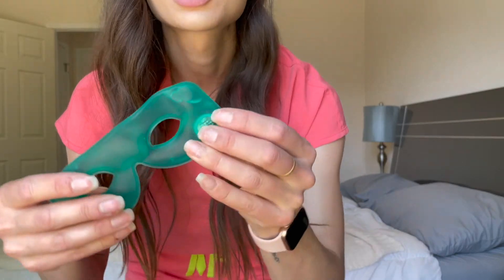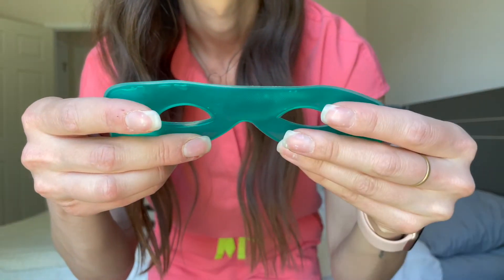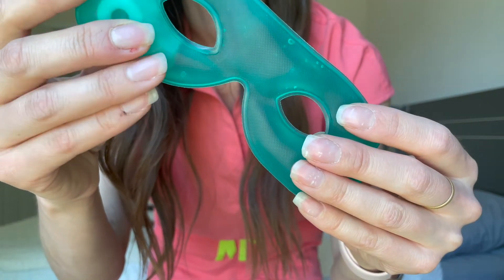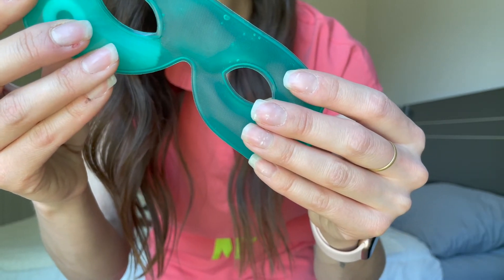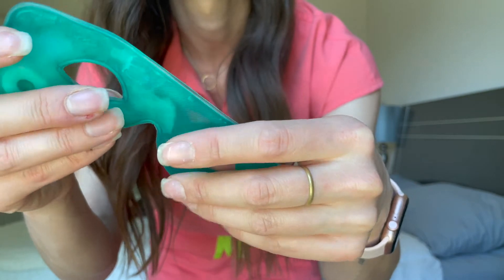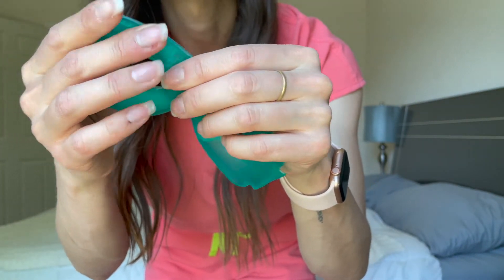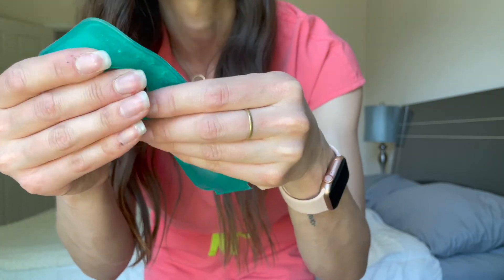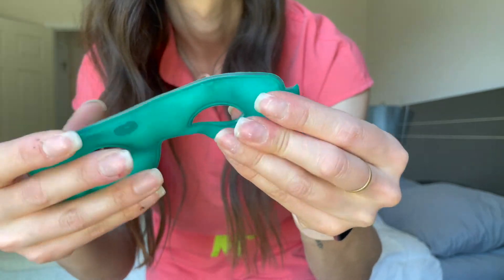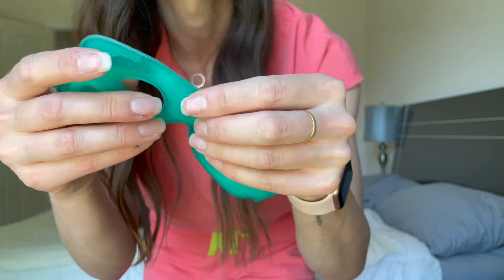You then place this inside the hard outer shell and put it on your eyes for about 15 minutes. The chemical reaction takes place throughout, and you'll notice this crystallization moving across the mask and you'll also feel it becoming hot in your hands. Go ahead and massage out the mask, and once it is heated throughout, it's ready to use.